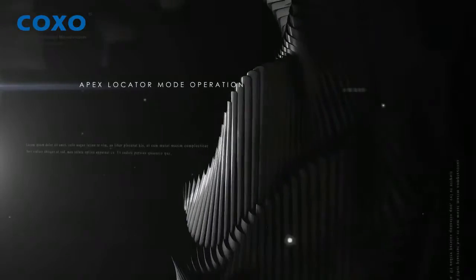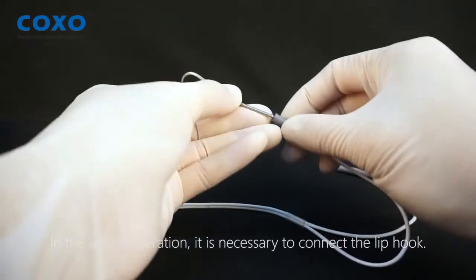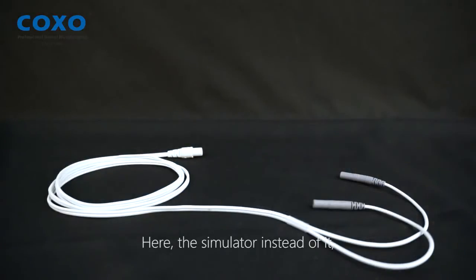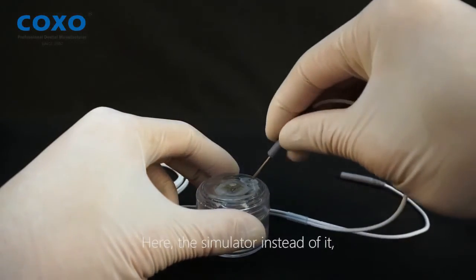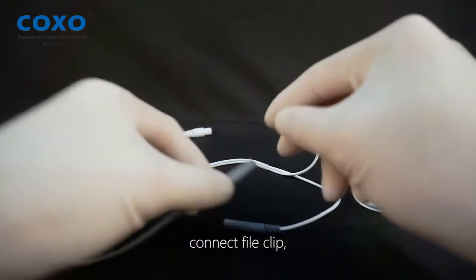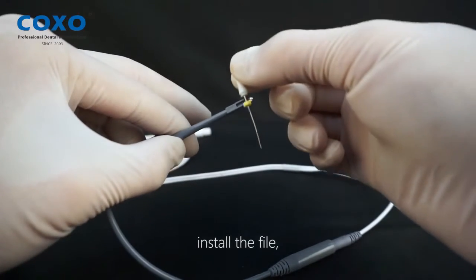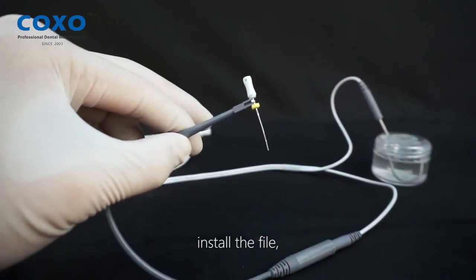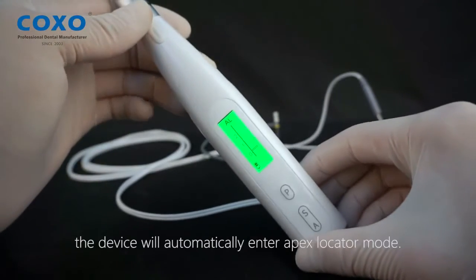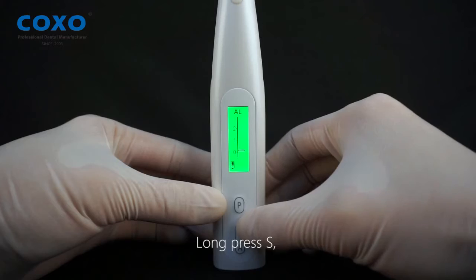Apex locator mode operation. In actual operation, it is necessary to connect the lip clip; here a simulator is used instead. Connect the file clip and install the file. Connect test wire A. After connecting test wire A, the device will automatically enter Apex locator mode.